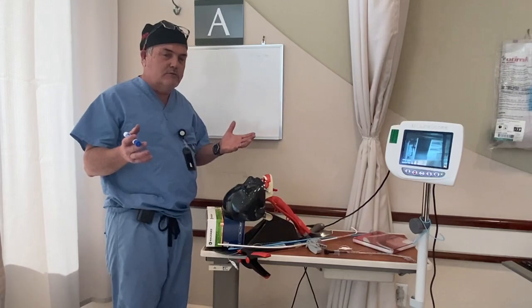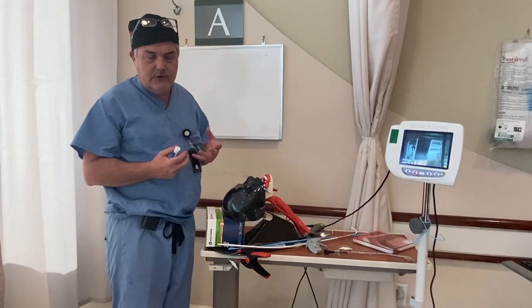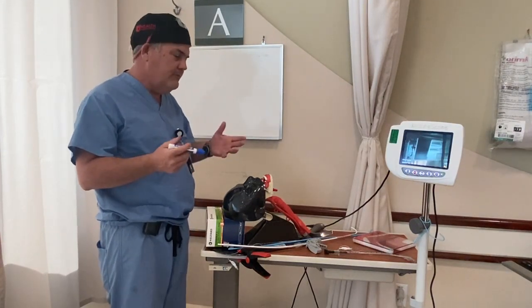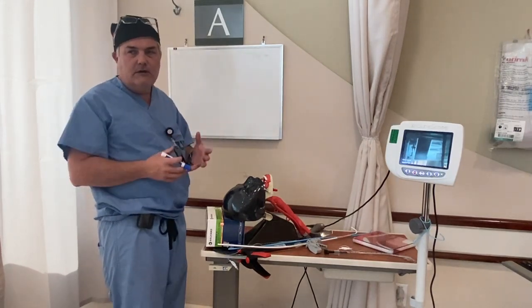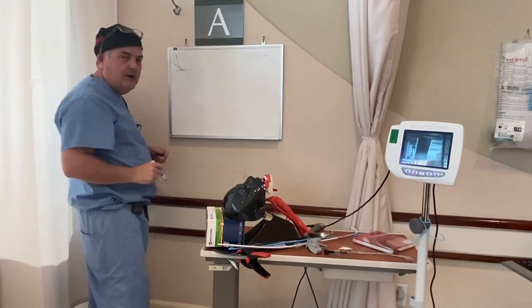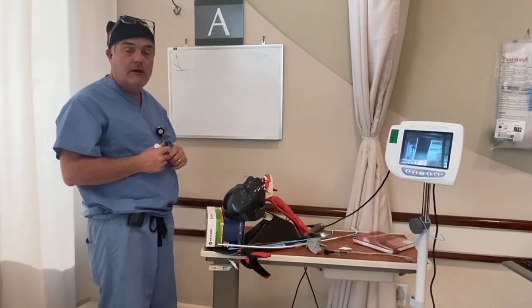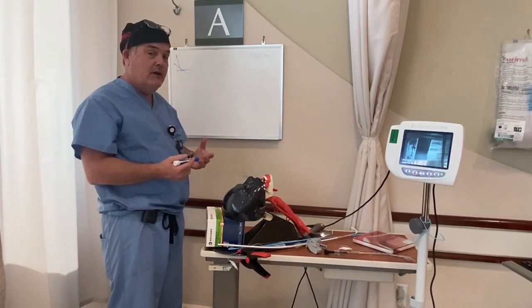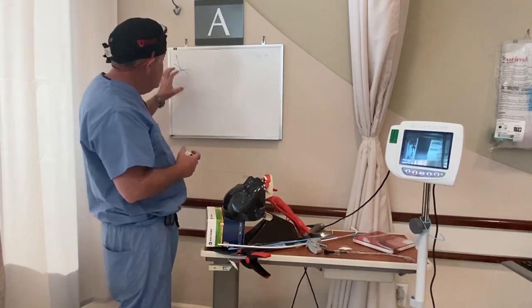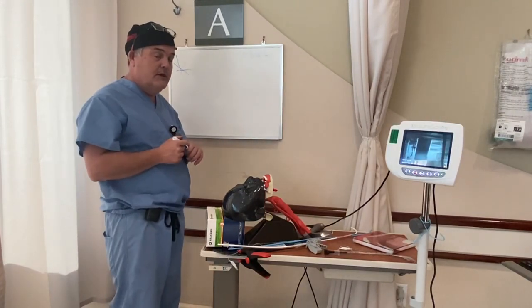I've been asked multiple times to document a teaching sequence I use to understand intubation in the context of geometry. We all learned the geometric model of alignment of three axes — the Bannister 1944 model — which is completely appropriate for direct laryngoscopy but doesn't help us understand how we intubate people with a video laryngoscope, and hasn't translated well to the modern era.